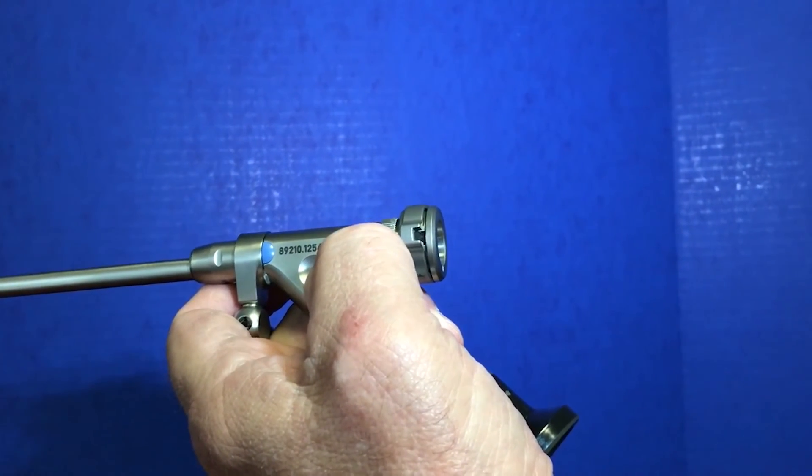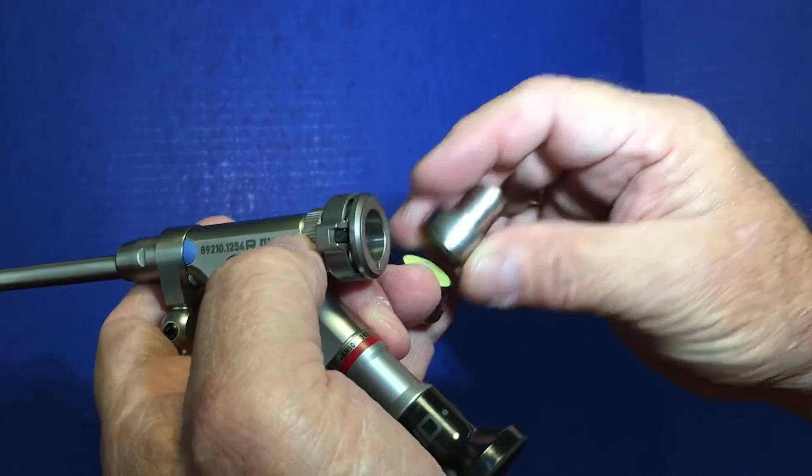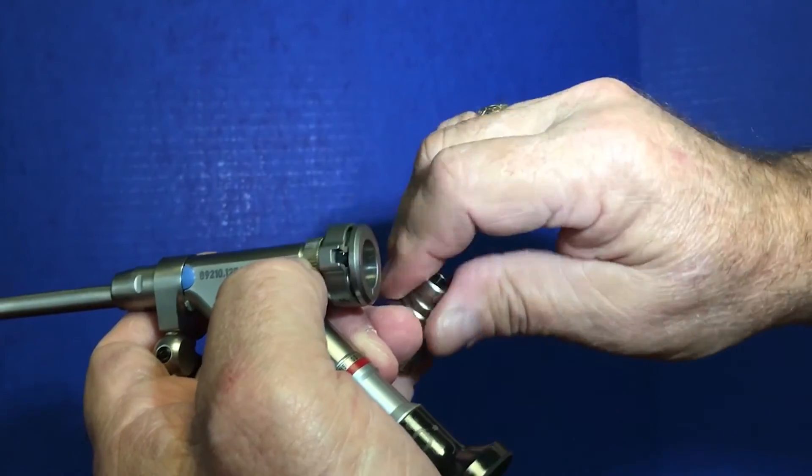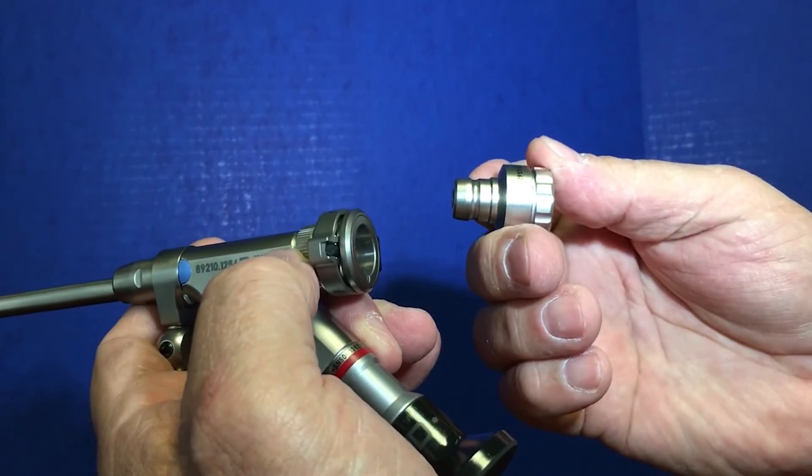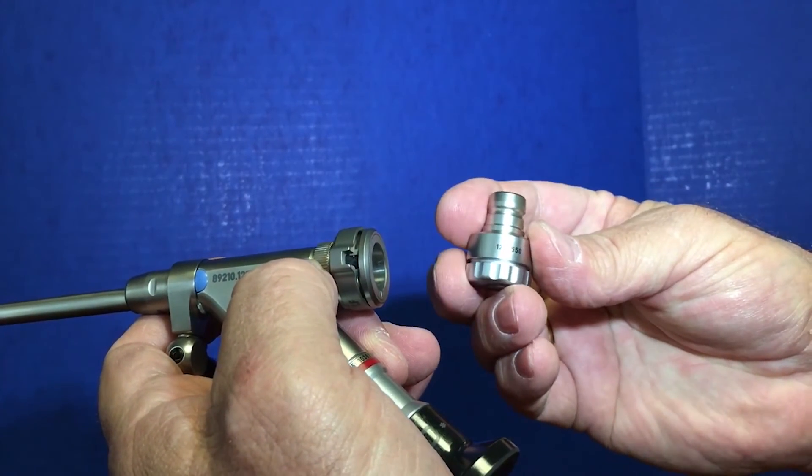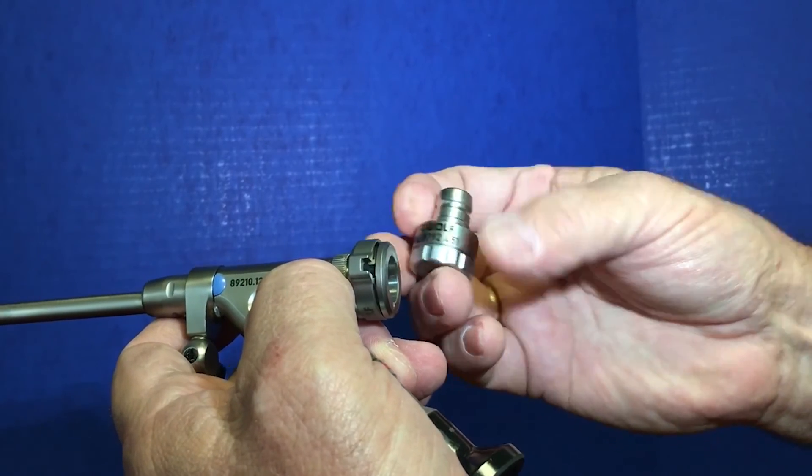There's a conical adapter that has a membrane inside of it to control the bleeding. Now explain that you want to put the membrane in at what point? The membrane is placed inside the cap of the conical adapter, and then those two pieces are screwed together.